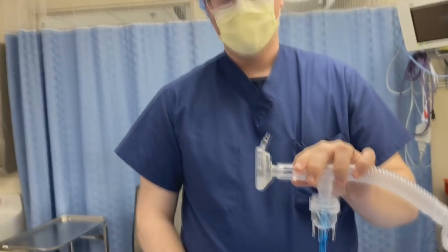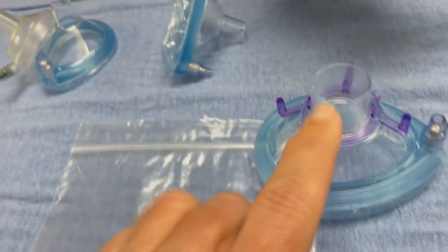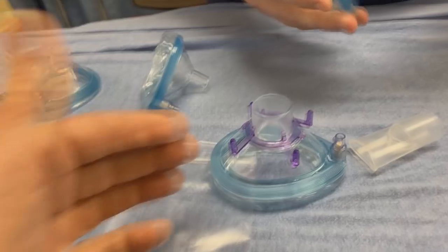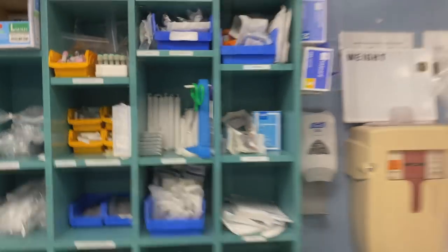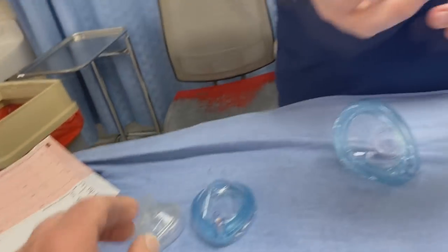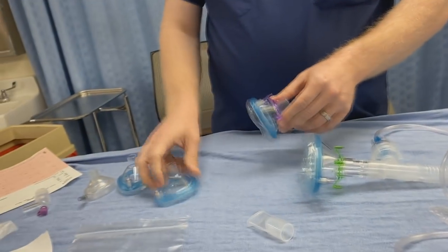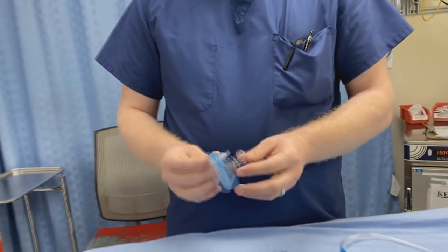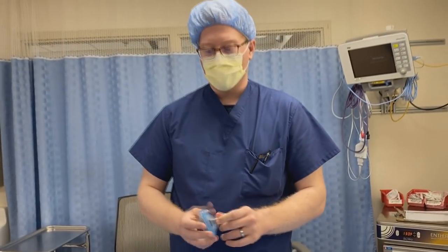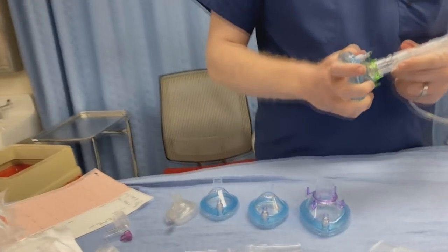On the larger sizes, they have these — I call them spider pieces — that actually let you potentially make straps. We made the straps from tourniquet tubing. For the little ones, it's still not optimal; if the child is that age or size, you're going to have a staff member or family caregiver holding that mask on, more for the safety of the patient.